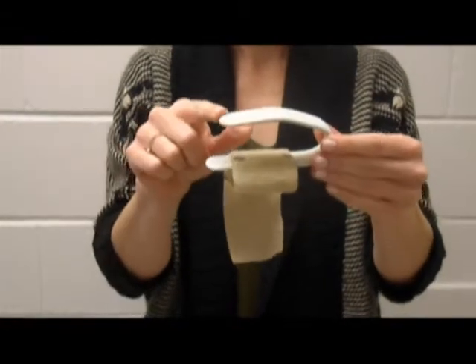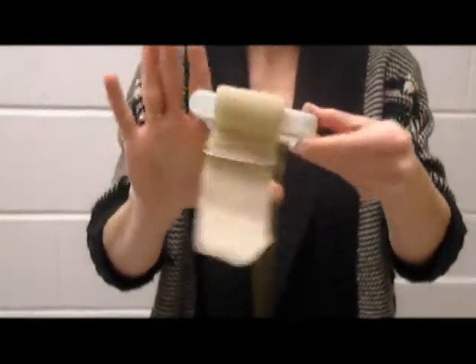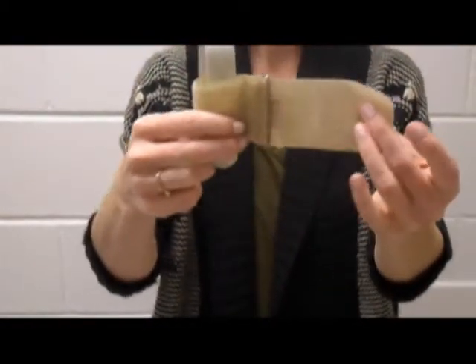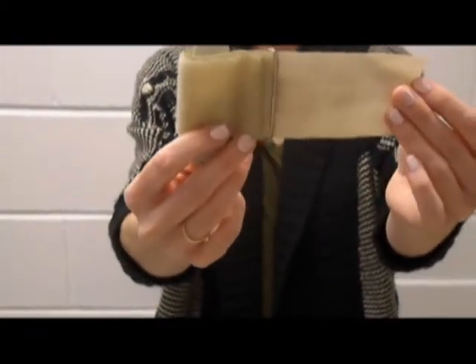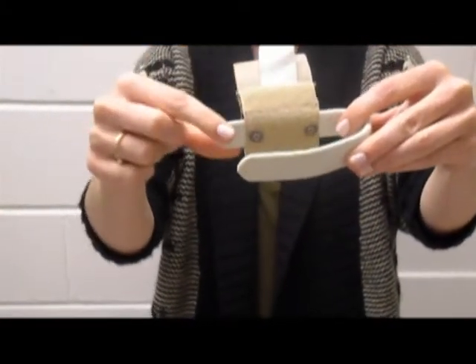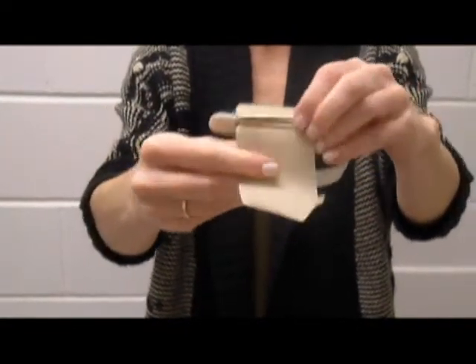The palm strap is fabricated from splinting material to fit the contour of the individual's hand. Four inches of sticky velcro is sewn onto five inches of soft velcro and is secured onto the splinting material using screws. The metal hook is sewn onto the end of the velcro and used as a fastening device.